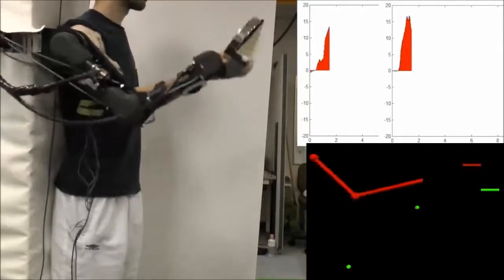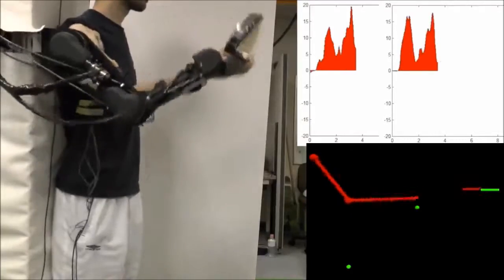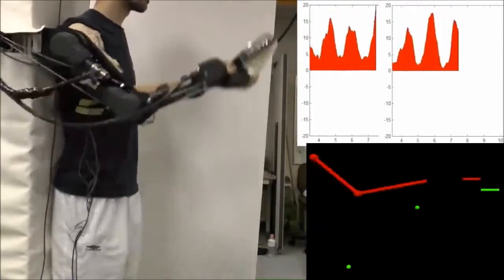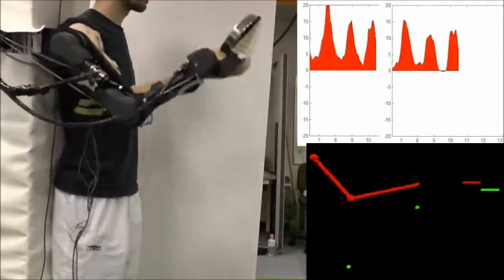In the concluding scenario, we applied our approach on a whole arm exoskeleton. We demonstrated that our method can be successfully employed for exoskeletons with multiple degrees of freedom.